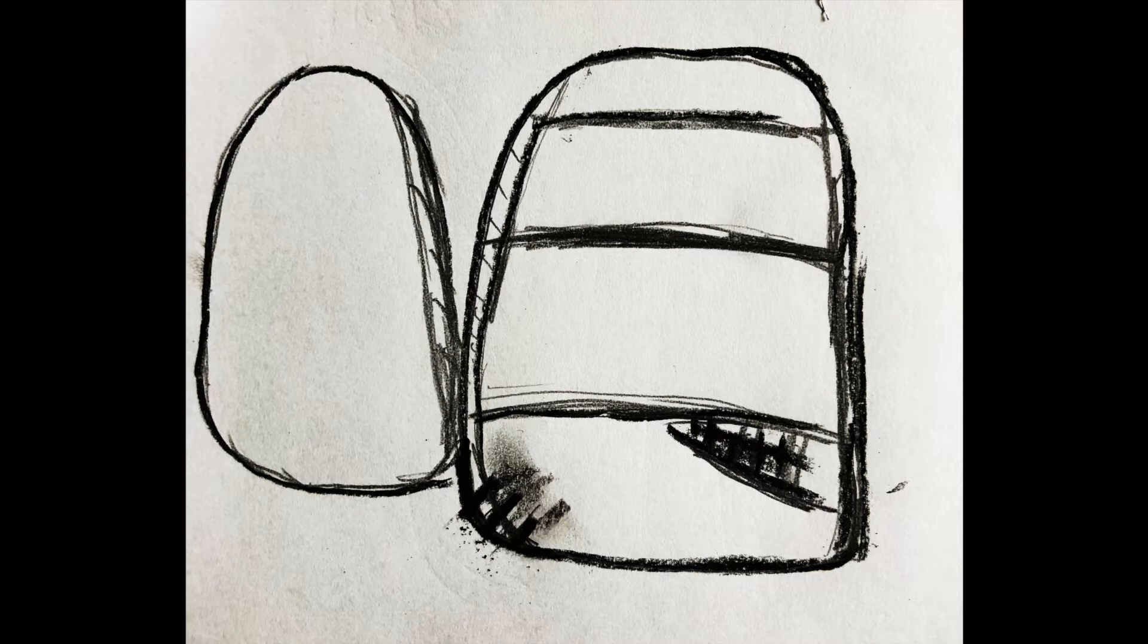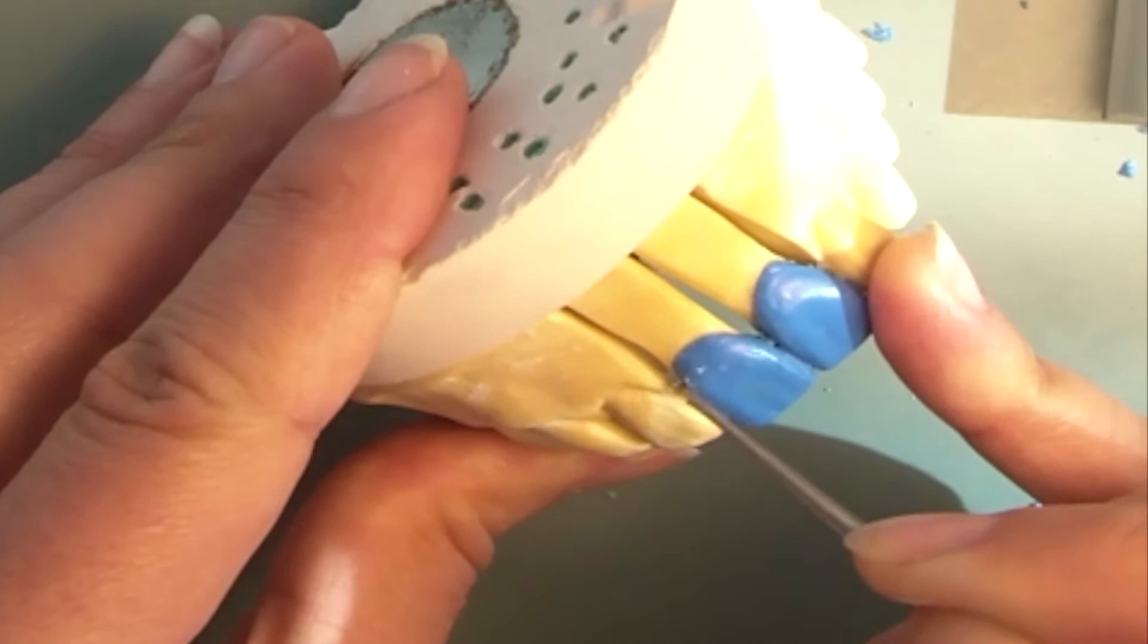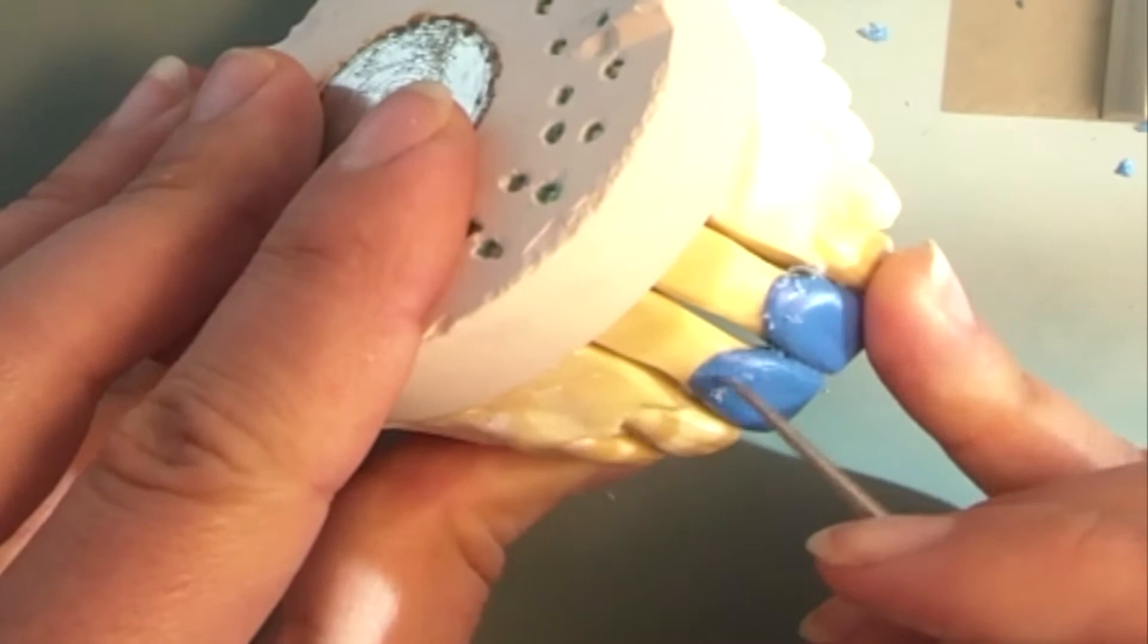I now divide my tooth into six surface areas. The distal edge is rounded off a little bit. Mesial, the longitudinal furrow is slightly deeper towards the incisor edge.